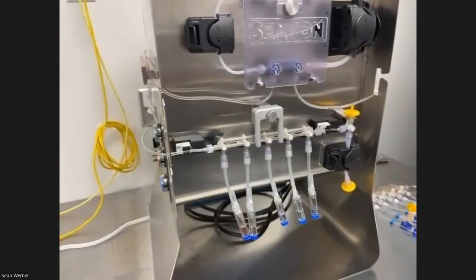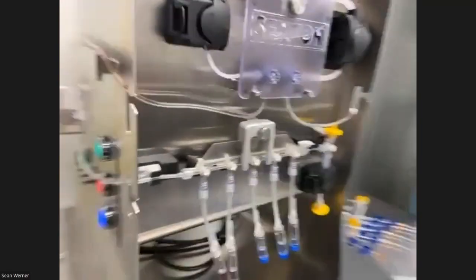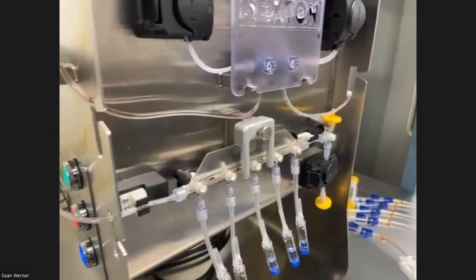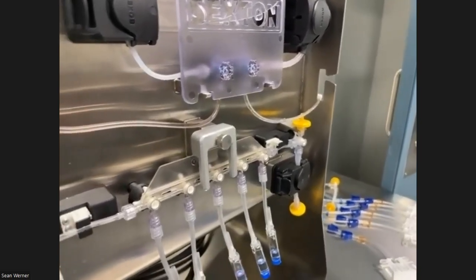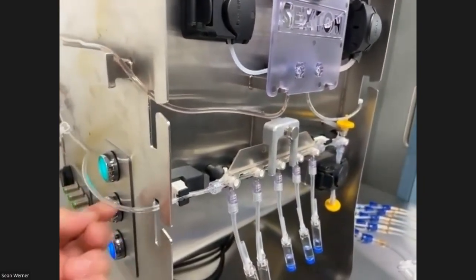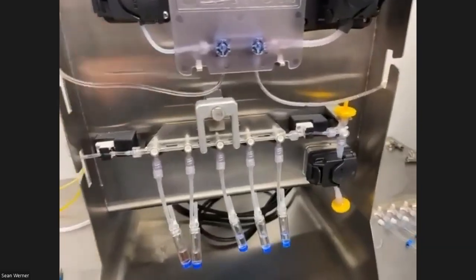So you could be sealing those vials off as they get filled, correct? Absolutely. Yep. So when you get to the end, you seal the whole manifold off with the stubs and then weld your new one on. That's what you're going to do? Yep. Absolutely. Personally, I think the quickest way to process is once this purge step is done, you seal that, take that off, and then weld the next line on while somebody else takes these and does whatever processing. But there's a lot of ways you can do that.